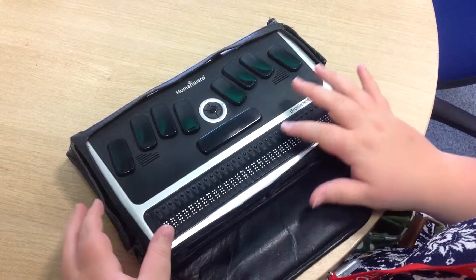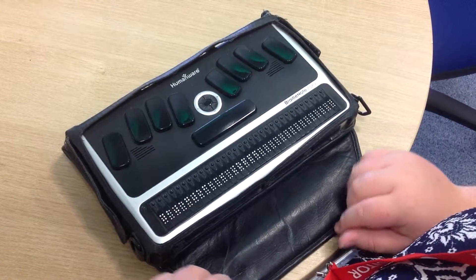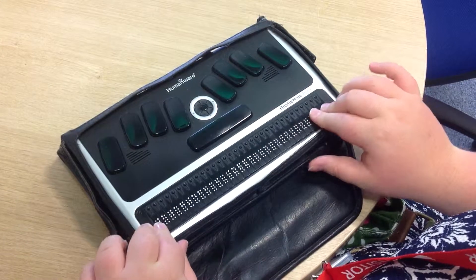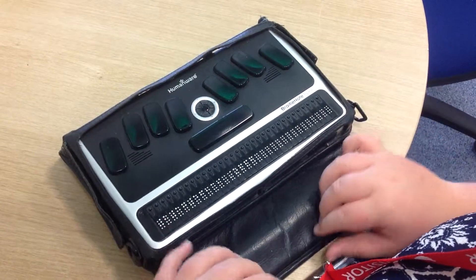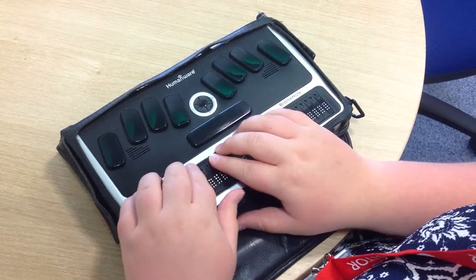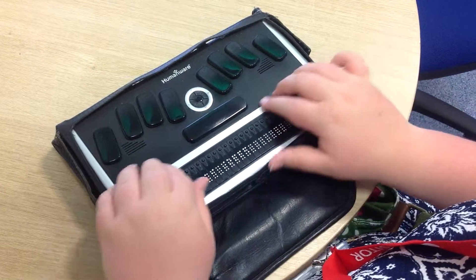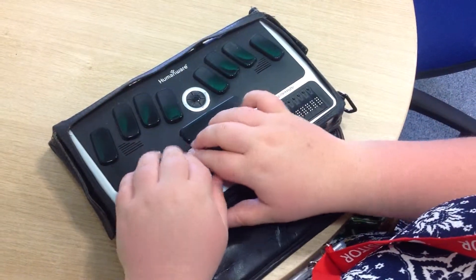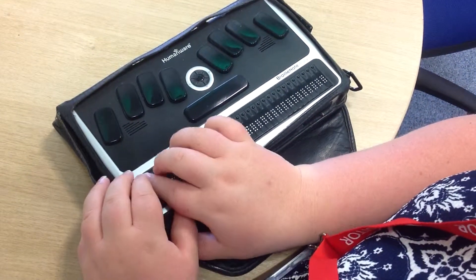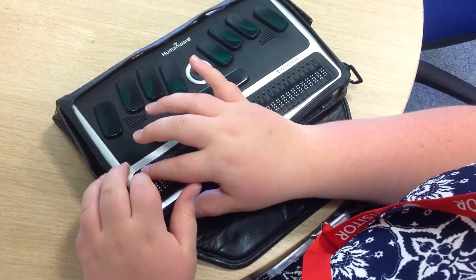This is Danielle again. I'm now going to tell you about the bottom display at the bottom of the braille note. So below the space bar there's a small strip of just blank space, and below that there's a little row of 32 little dots.